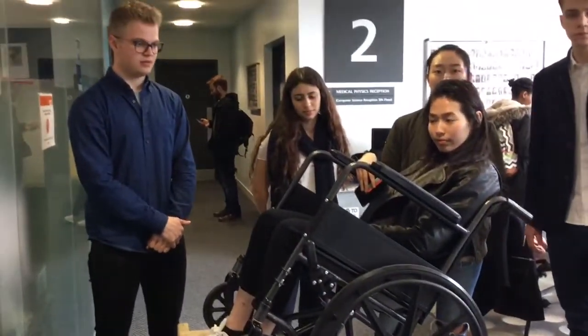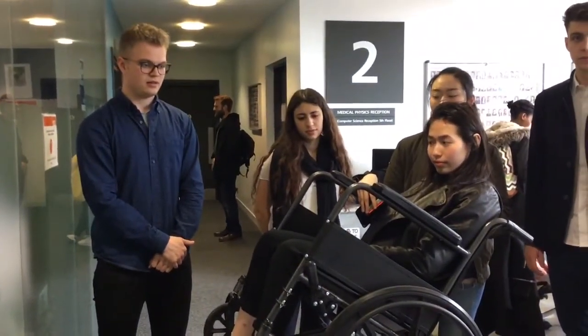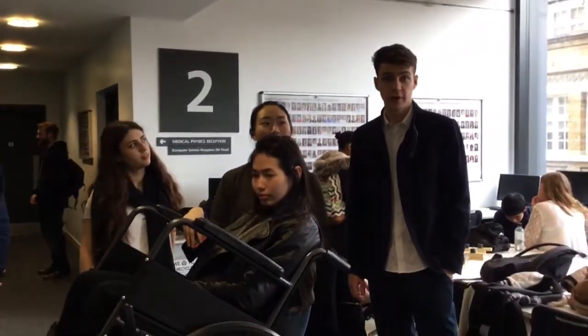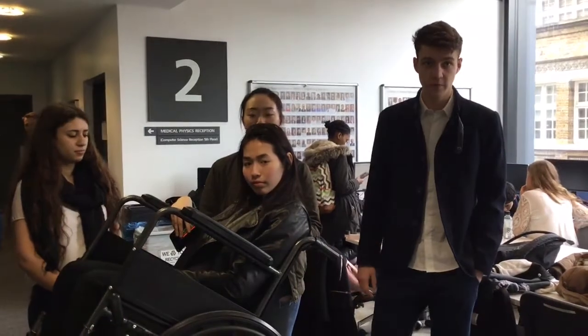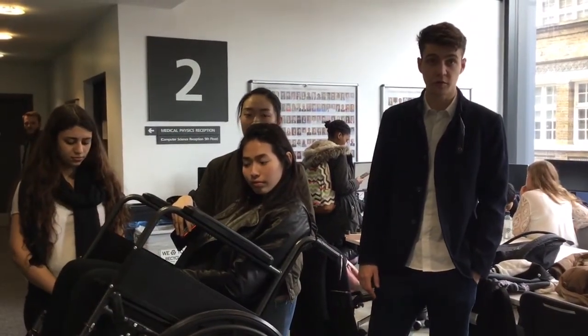What's the maximum weight of the user that this is able to carry? The maximum weight would be 100 kilograms as supported by the wheelchair. We loaded it with 150 kilograms and it showed a good sense of support and stability.